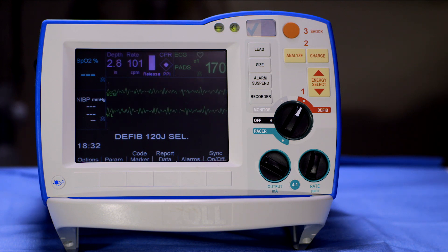If your compression depth or rate falls outside of guidelines, the numerical value of rate and/or depth will turn red on the CPR dashboard. The R-Series defibrillator will also provide an audible message: "Push harder." And a metronome will beep to help you reach 100 compressions per minute. This real-time feedback can help ensure you are doing high-quality chest compressions.